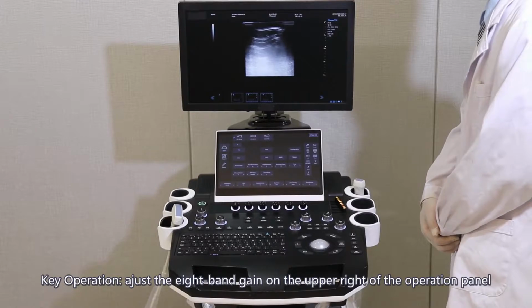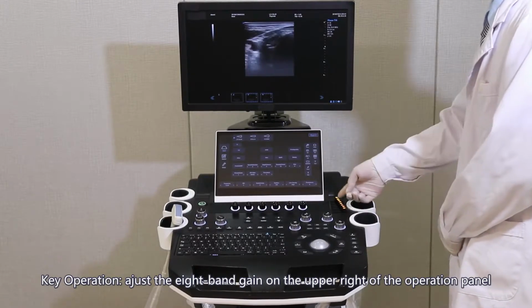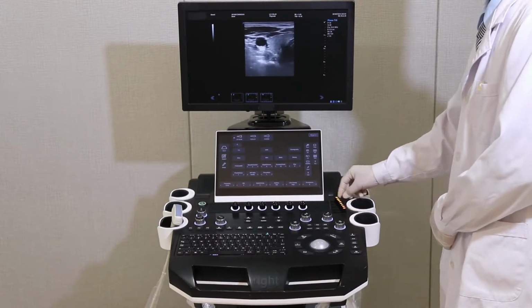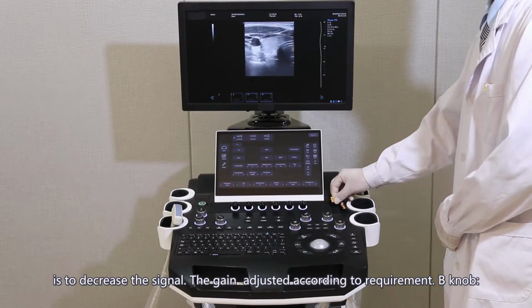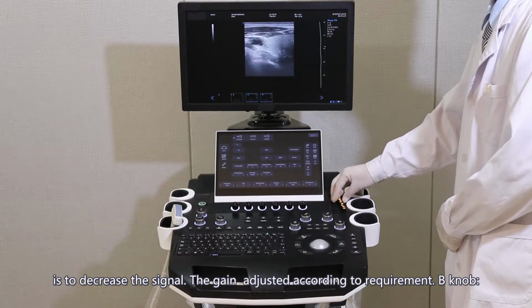Key operation. Adjust the 8-band gain on the upper right of the operation panel. Right is to increase the signal. Left is to decrease the signal. The gain is adjusted according to requirement.